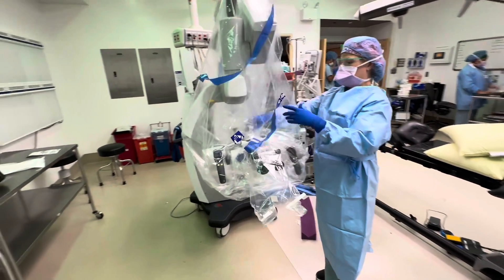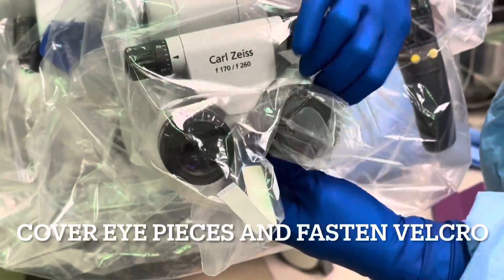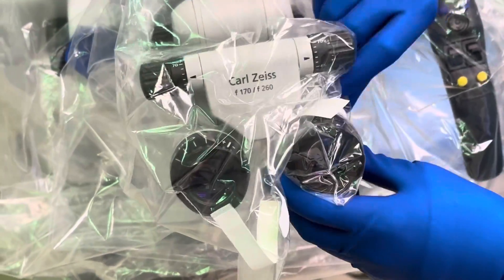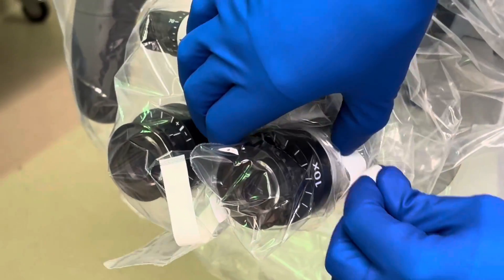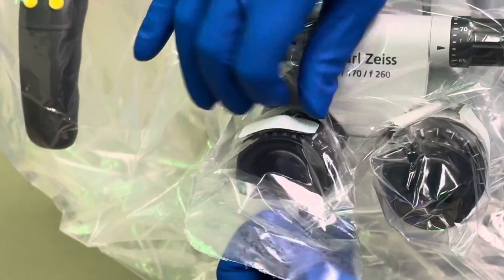Then fix the eyes on. It's important that the velcro is all the way down. Make sure there's no plastic in your way, because sometimes plastic will get in the way. Do the same on the other one.